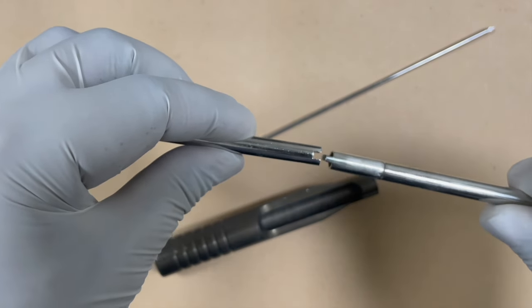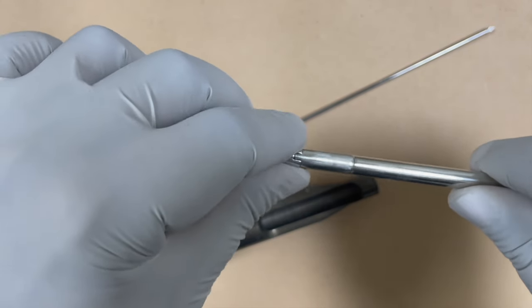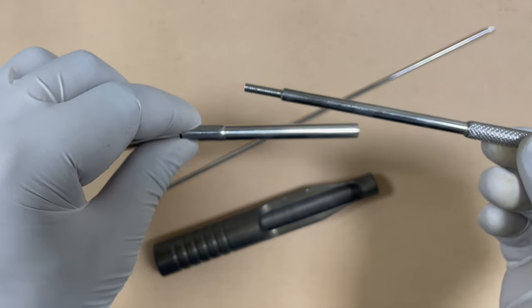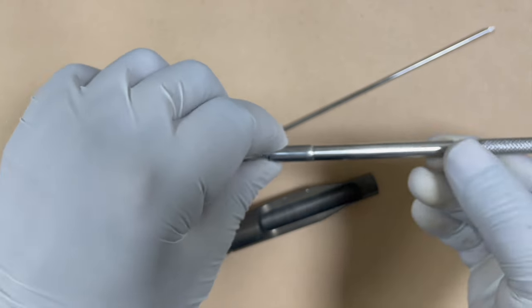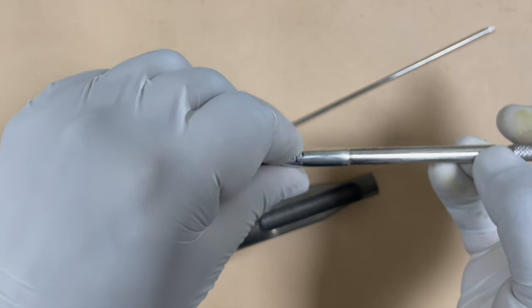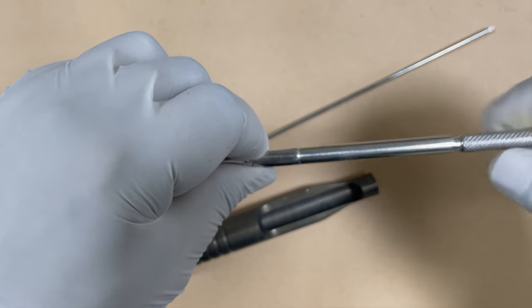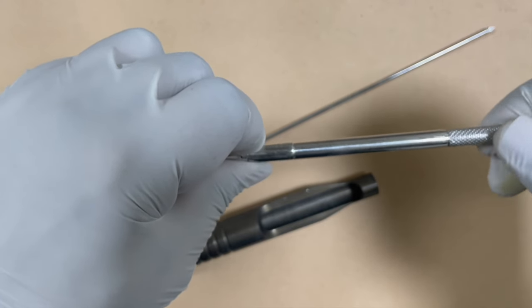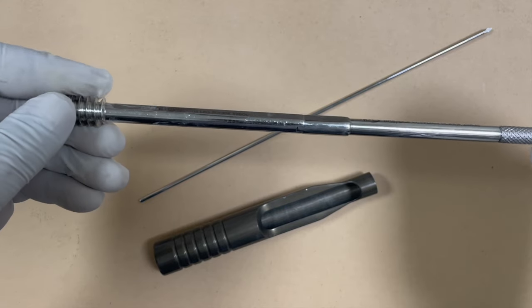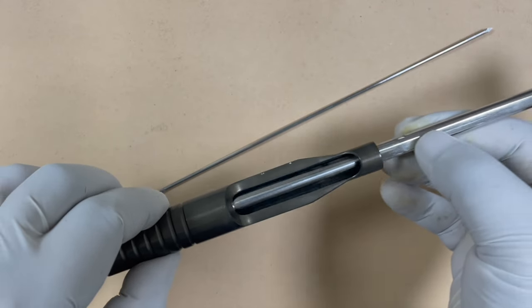After attaching the coupling device you use this threaded device, which is part of the coupling mechanism. Insert the coupling device over this hollow locking device and bring the threads out. Tighten the assembly so that you grab the coupling device with the lag screw — it becomes a single locked assembly. Then insert this assembly inside the sleeve.